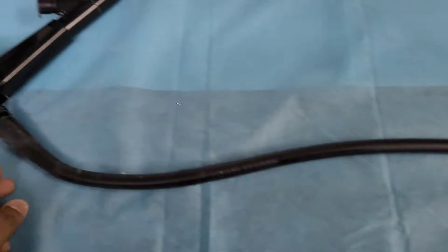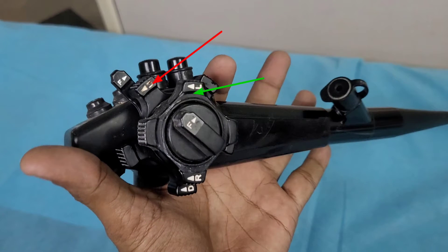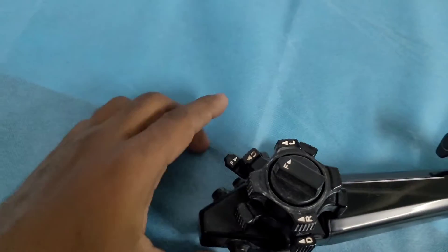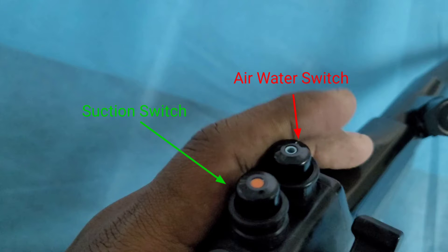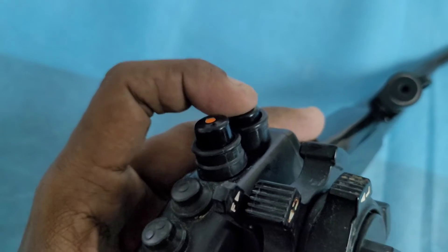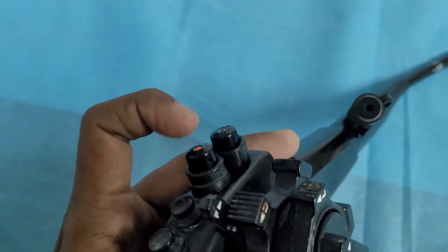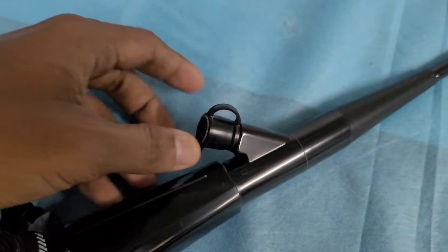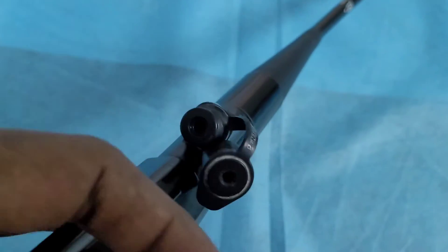This is the hand piece. The hand piece has a left-and-right wheel and an up-and-down wheel, which can be rotated up, right, or left. There is also an air-water provision and a suction provision. The biopsy channel is here — whenever you need to take a biopsy, you open the biopsy port, put the biopsy cable inside, take the biopsy, and close it back.